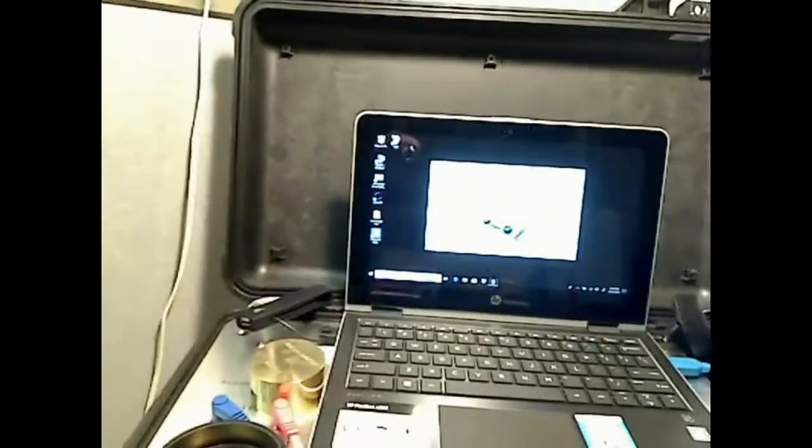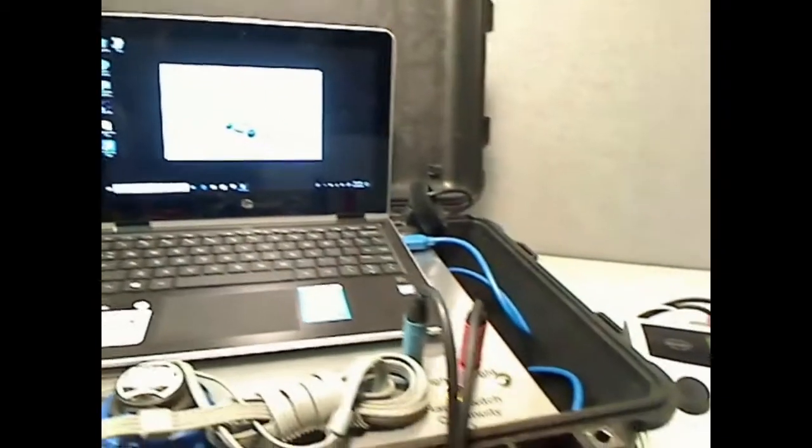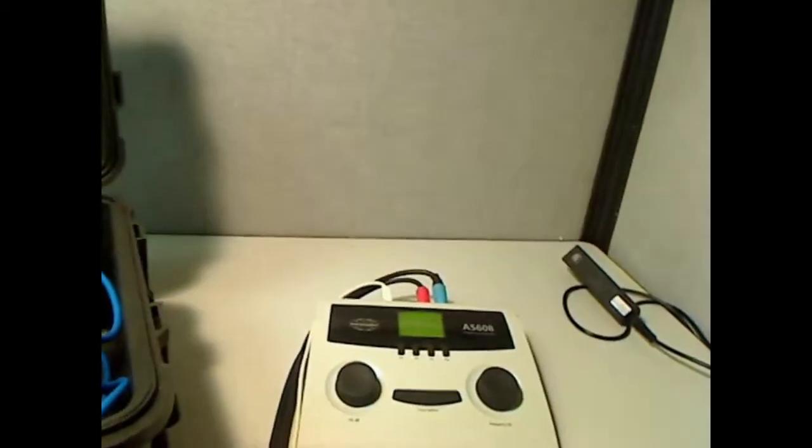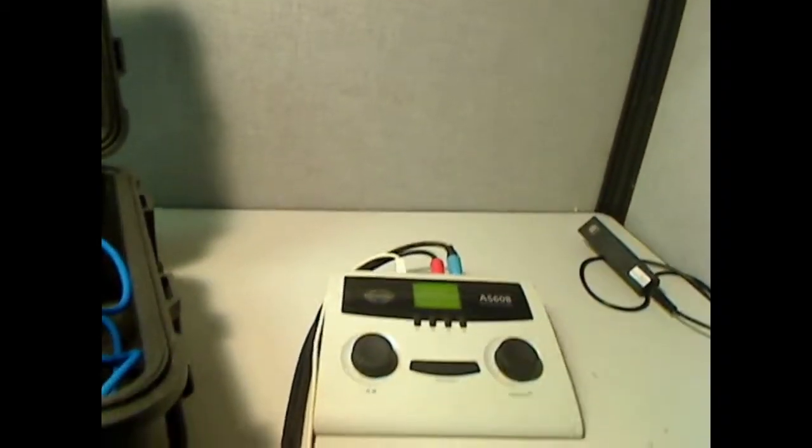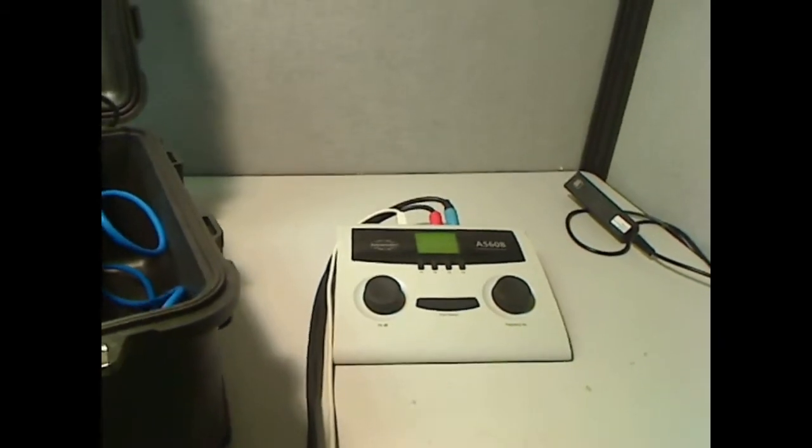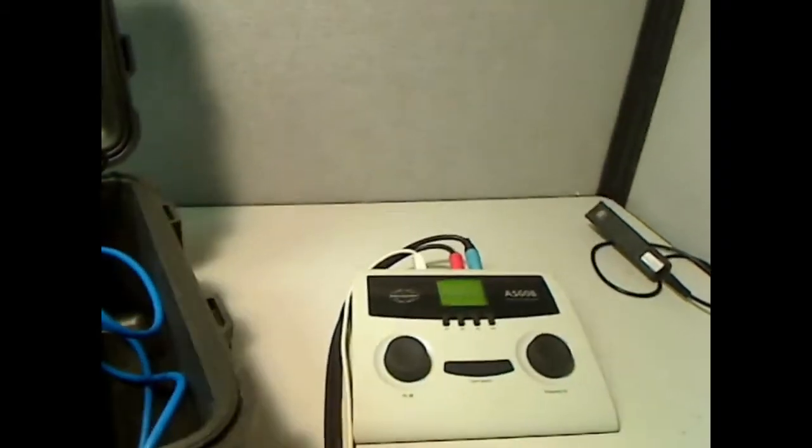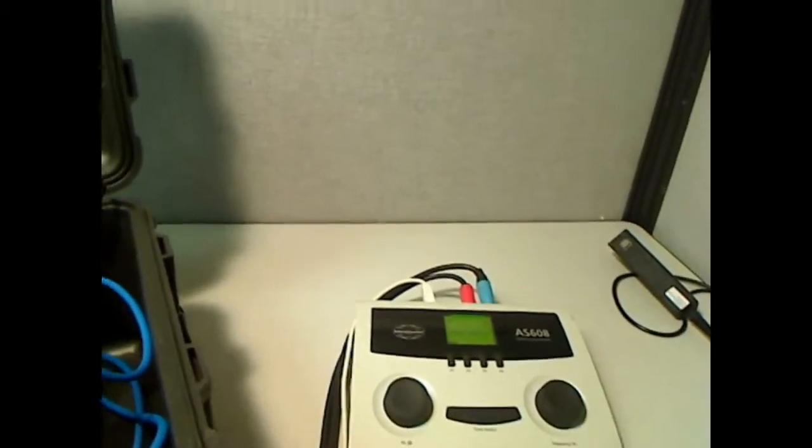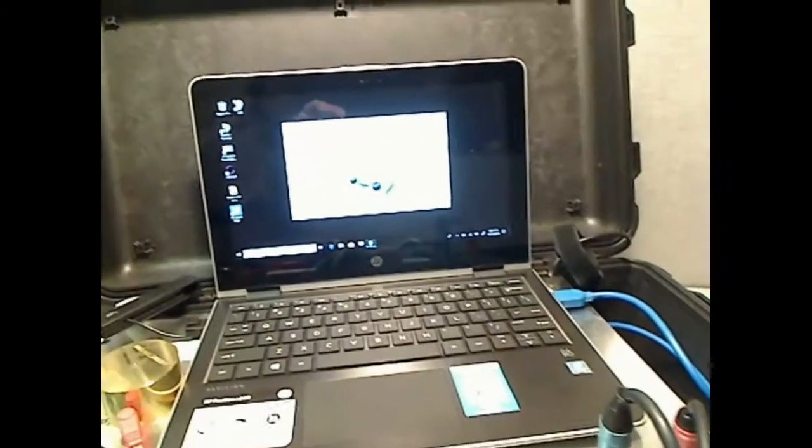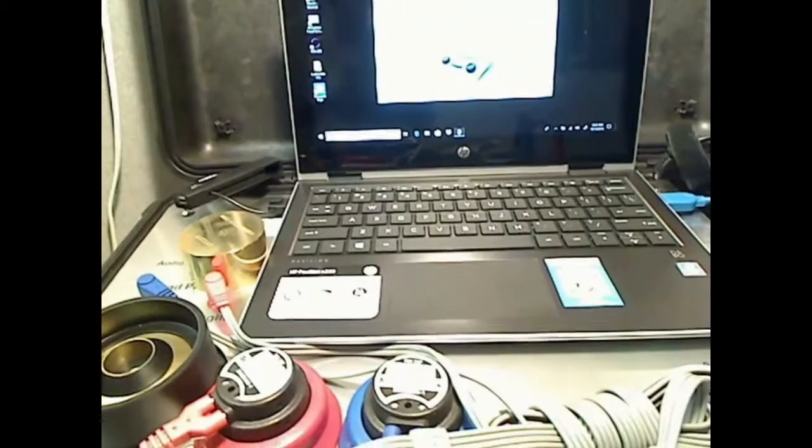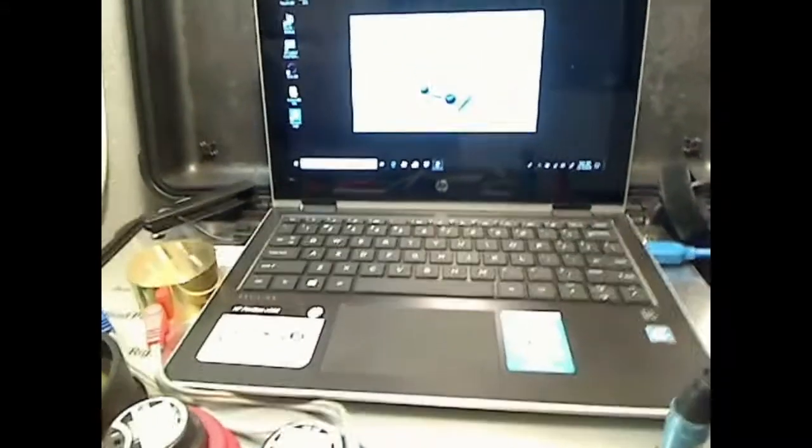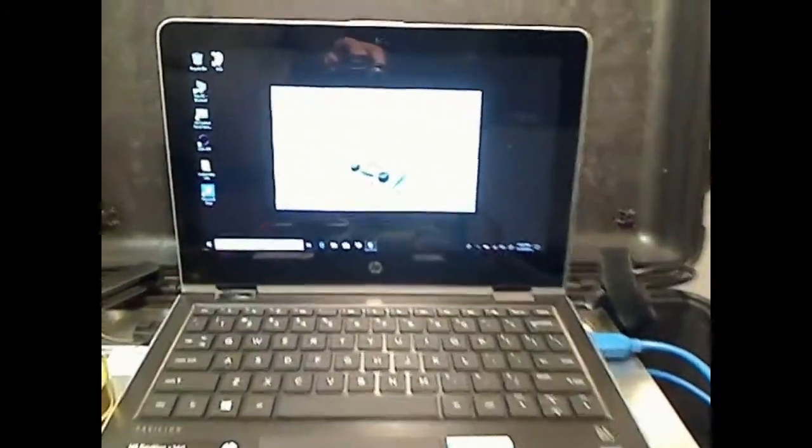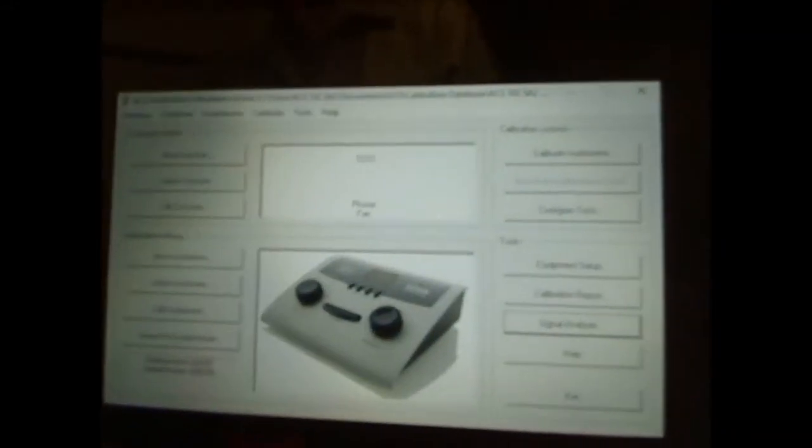I've got it hooked up over here to an Interacoustics, what is that, a 608. I don't even have to have it plugged into the wall because that audiometer is powered off the USB. It's the same thing as what this ACS calibration system is. We get the power from the 3.0 USB port. I'm bringing this around up over here and it shows you the picture of that audiometer right there on the screen. Simple.